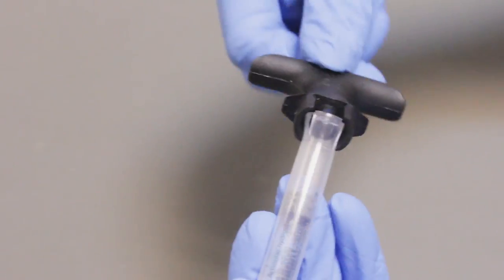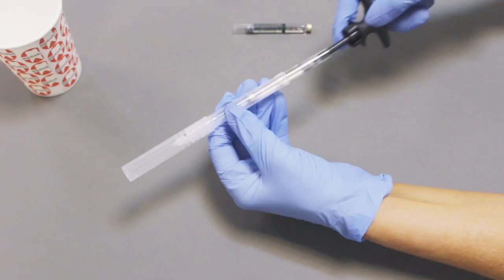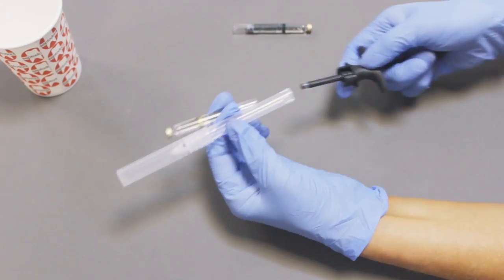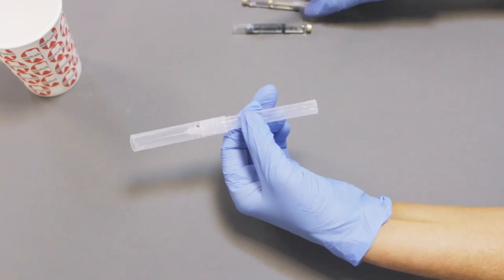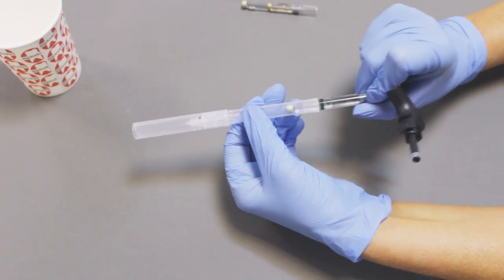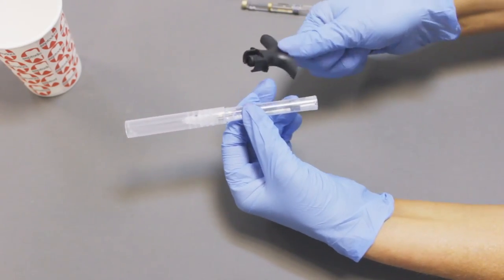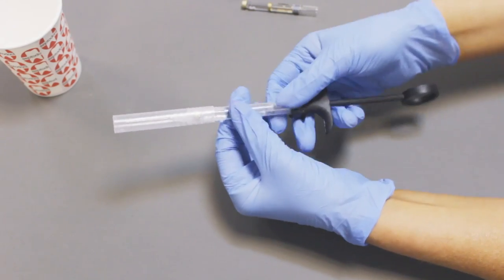To change the cartridge, use the silicon ring on the handle and insert one centimeter into the anesthetic cartridge, pulling the local anesthetic cartridge out to be replaced with a new cartridge. Remember to pull back the protective sheath and click and lock onto the handle.